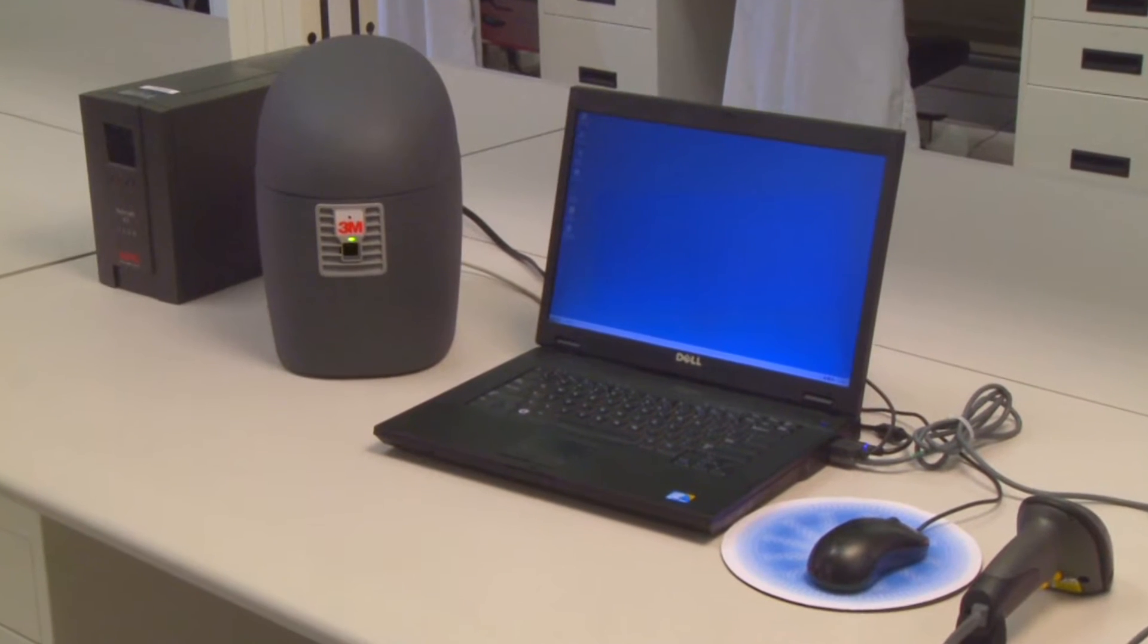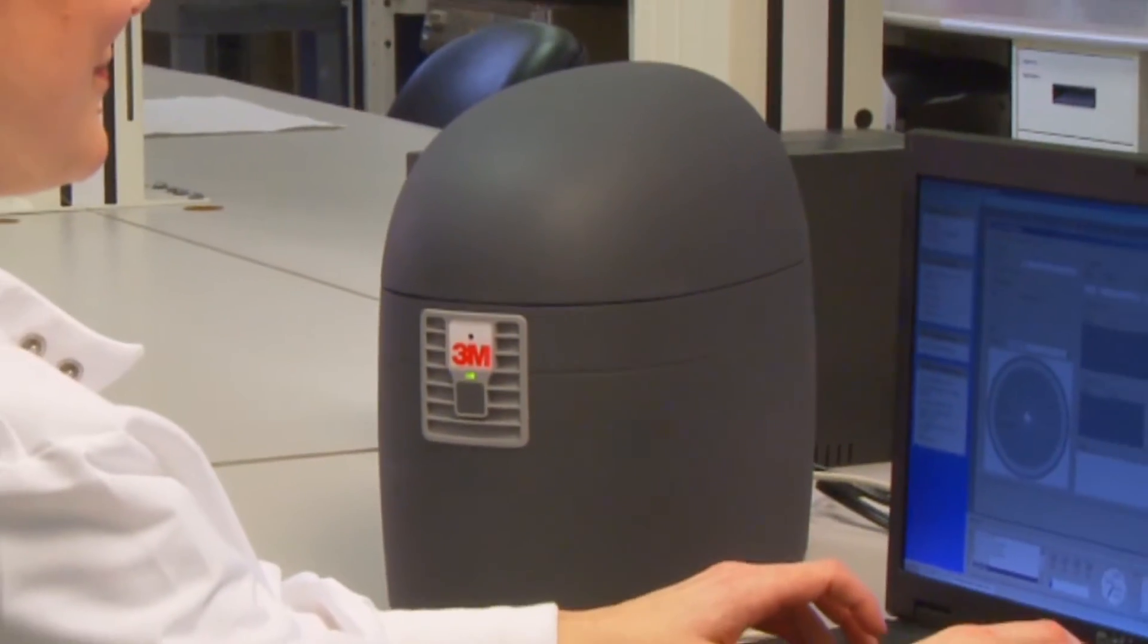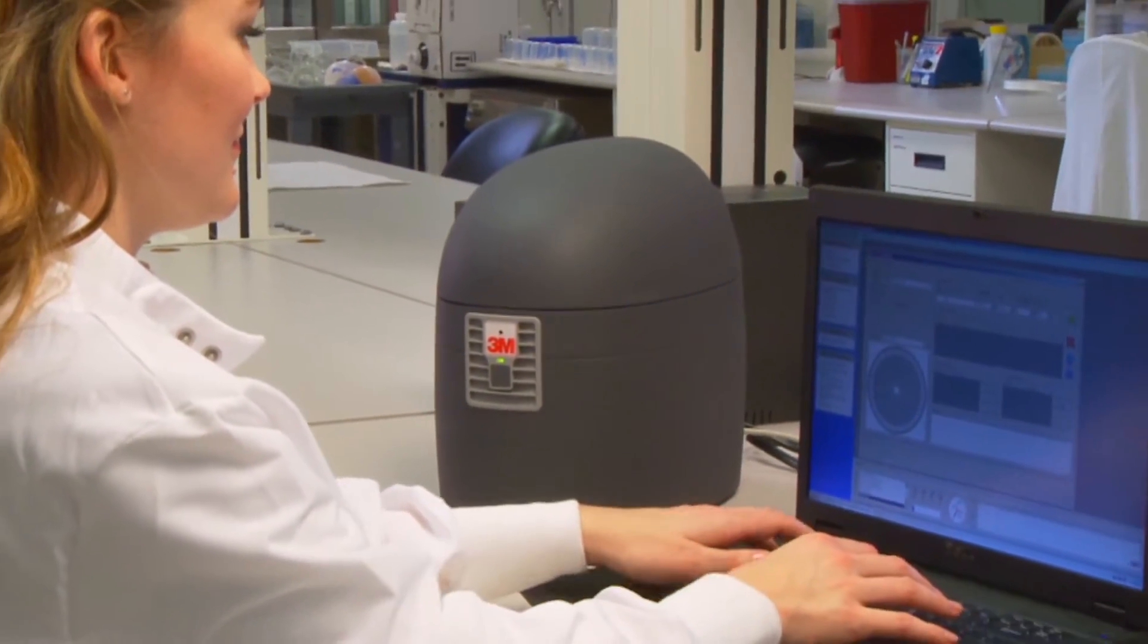Because now you have the capability to put the expertise, content and quality used by Quest Diagnostics and key molecular laboratories where it truly belongs, inside your lab.